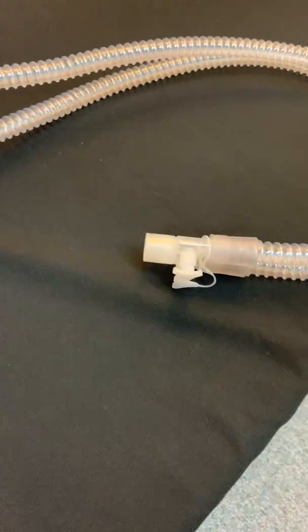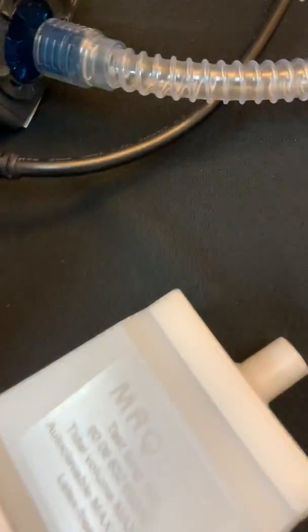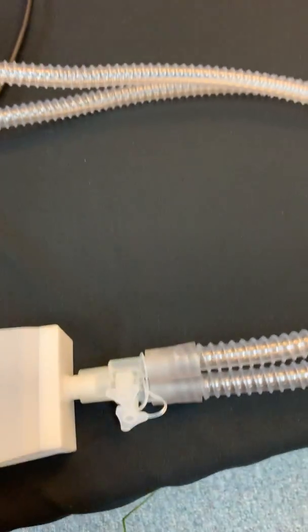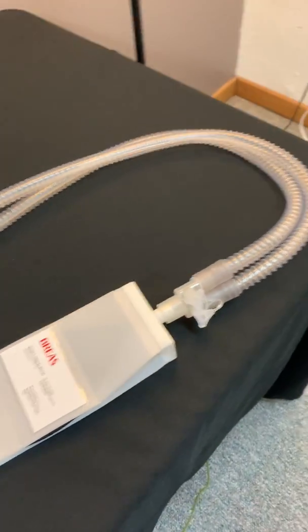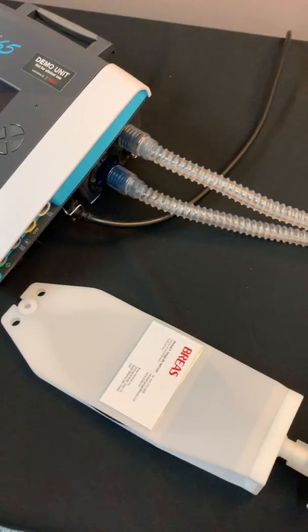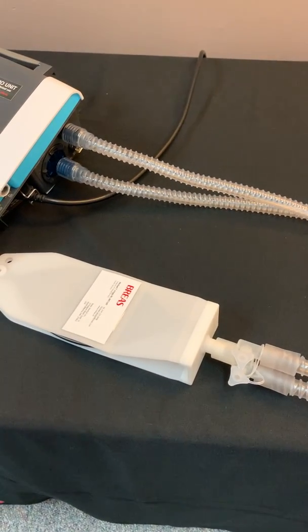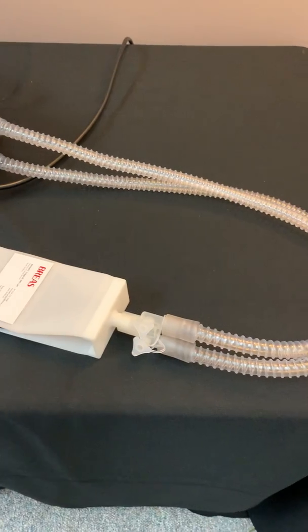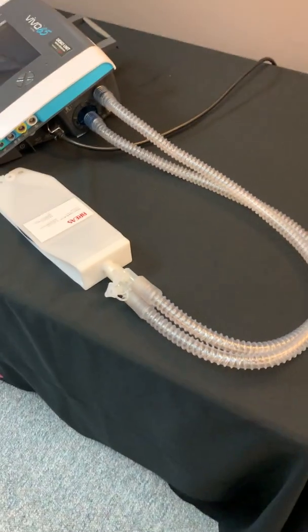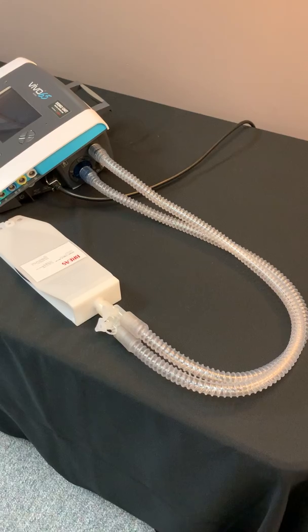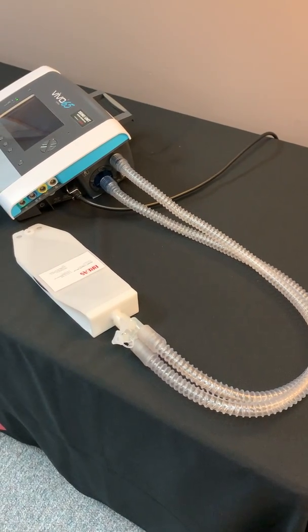I'm going to go ahead and connect our test lung to the circuit, like so, and that is how you set the Vivo 65 up in the dual limb circuit configuration.